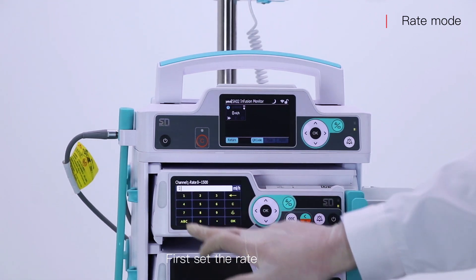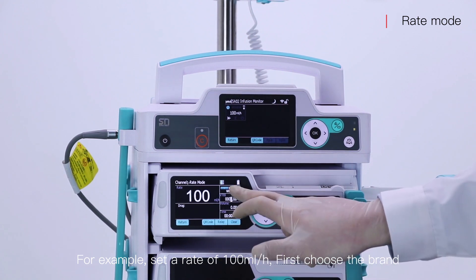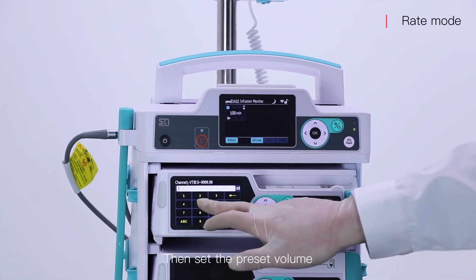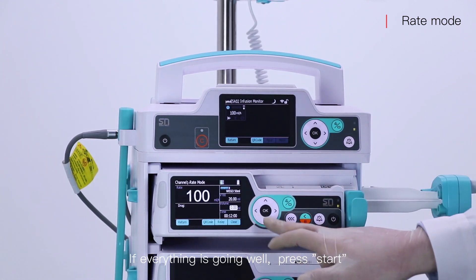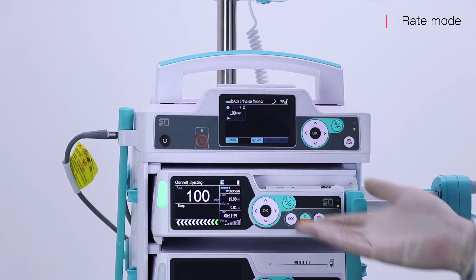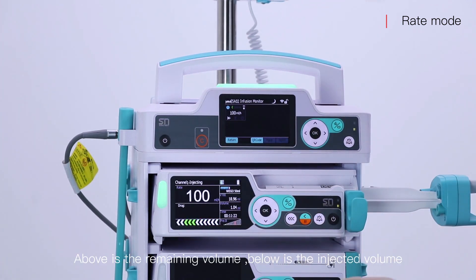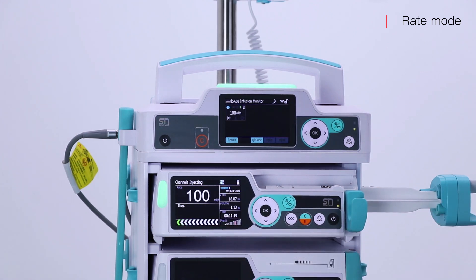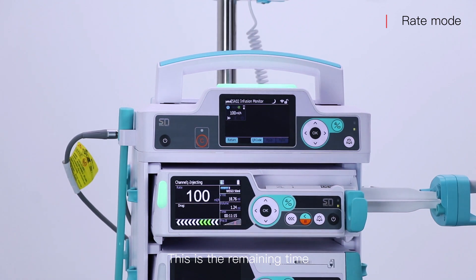First set the rate. For example, set a rate of 100 mL per hour. First choose the brand, then set the preset volume. If everything is going well, press start. Above is the remaining volume, below is the injected volume. This is the remaining time.